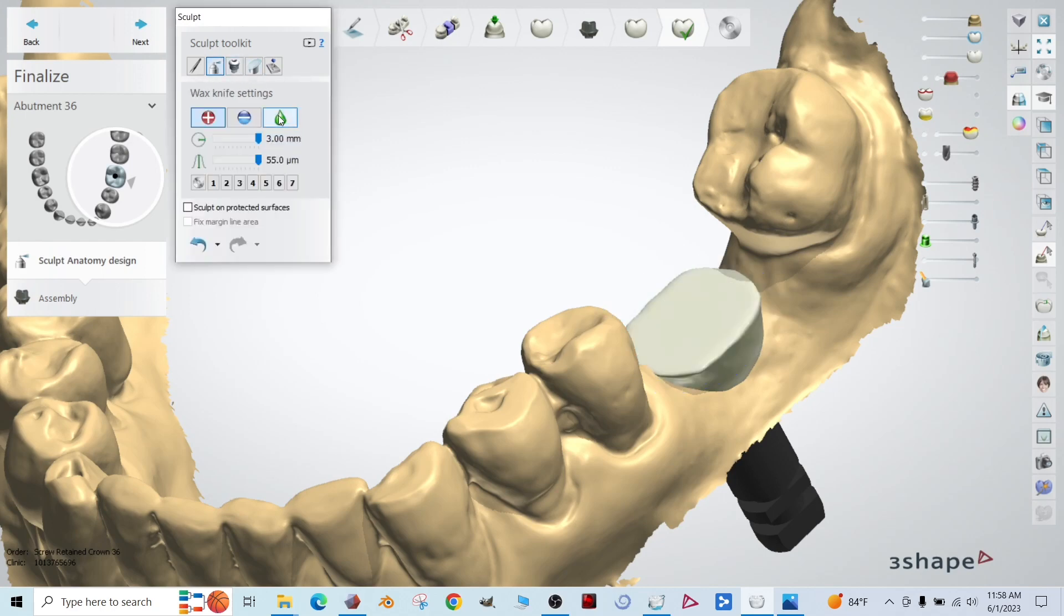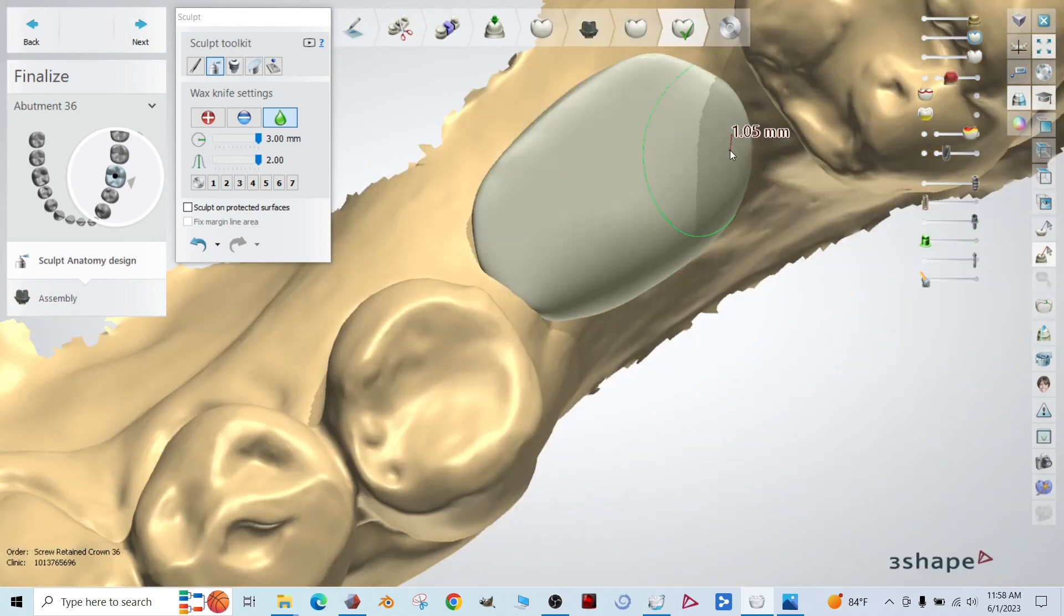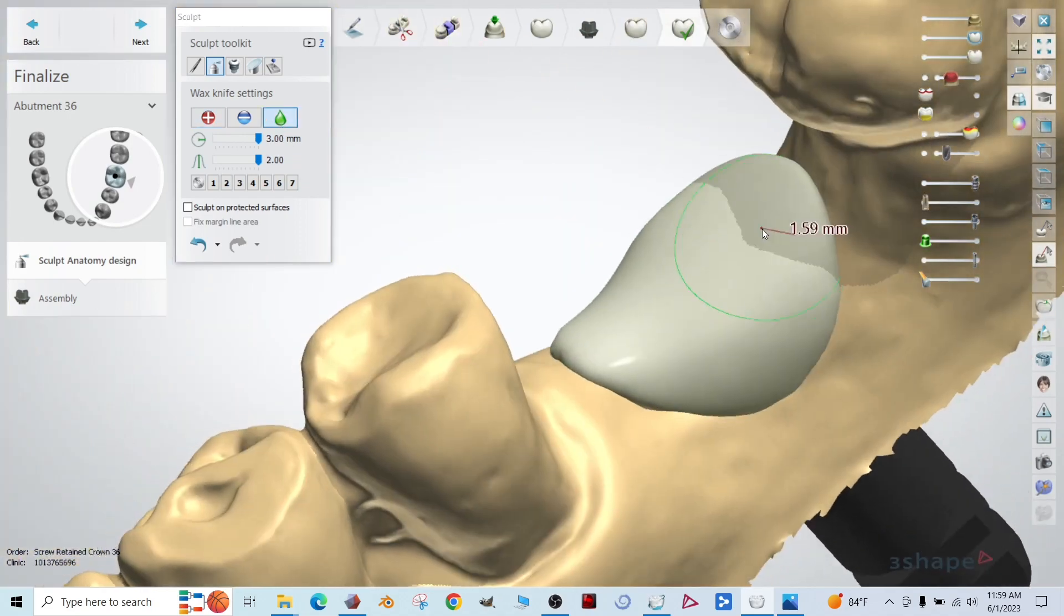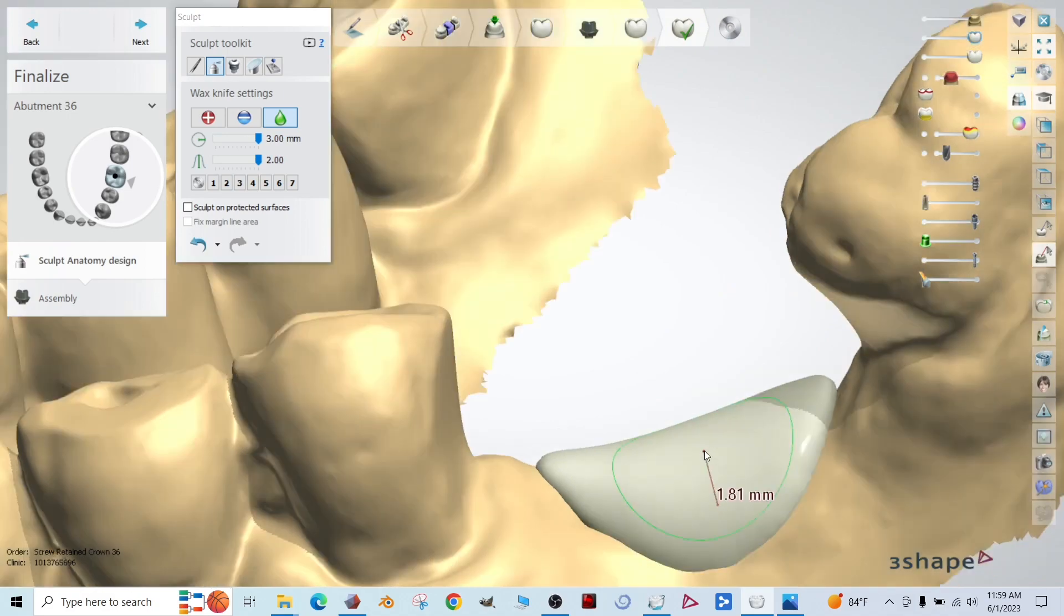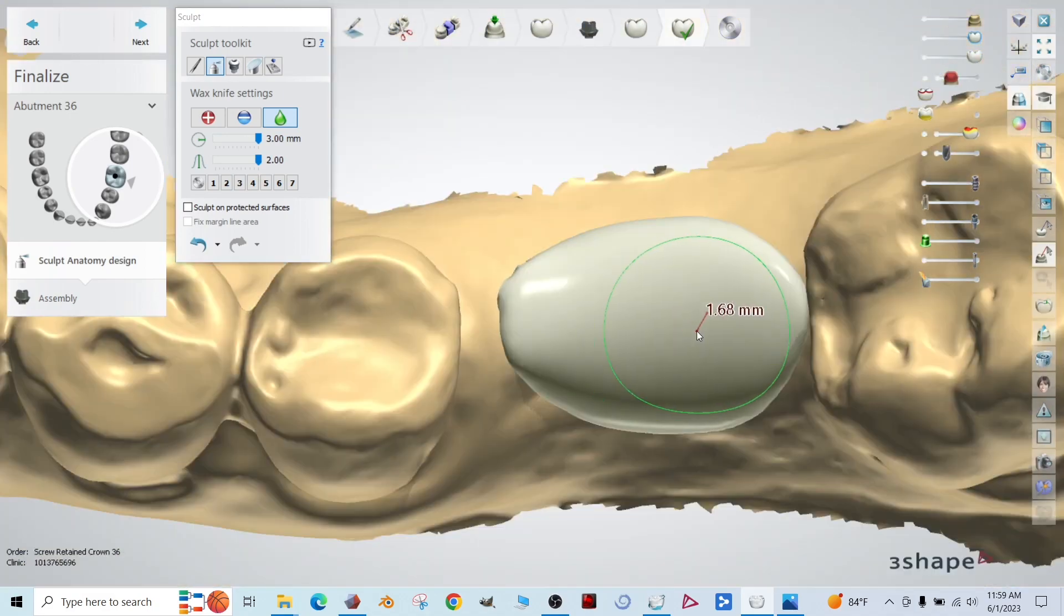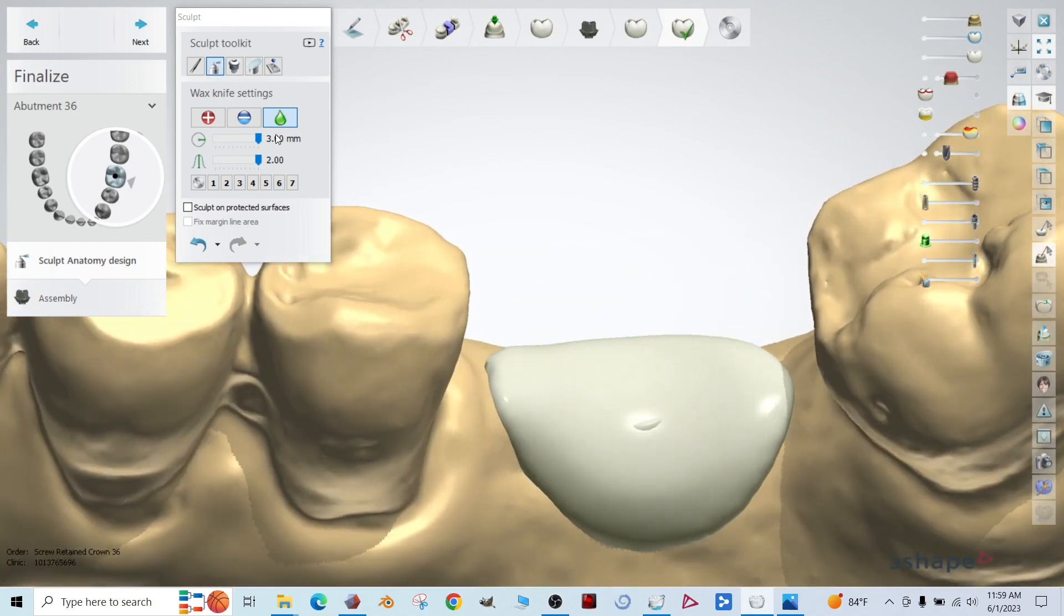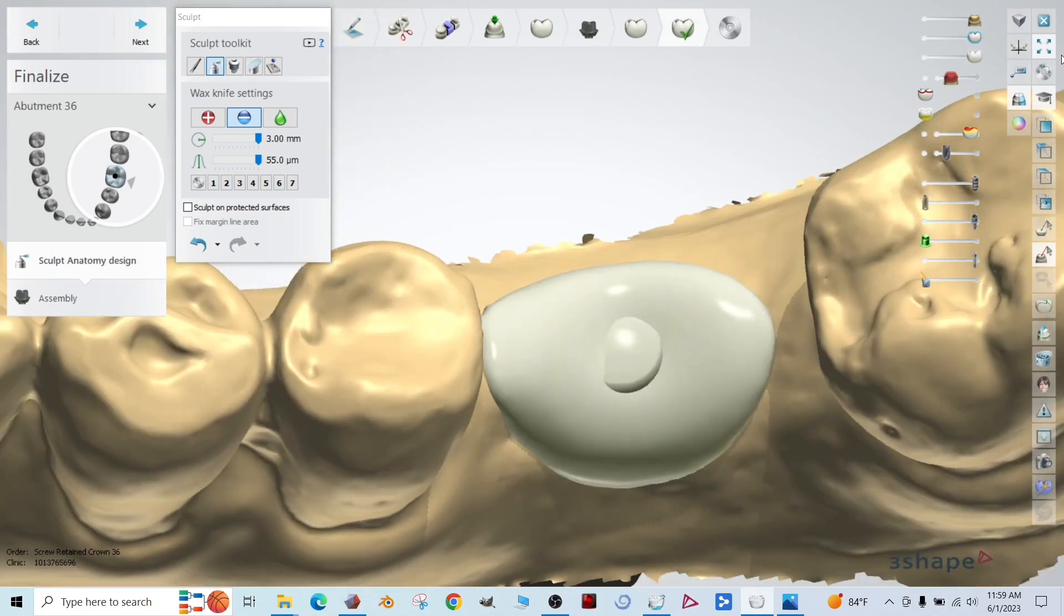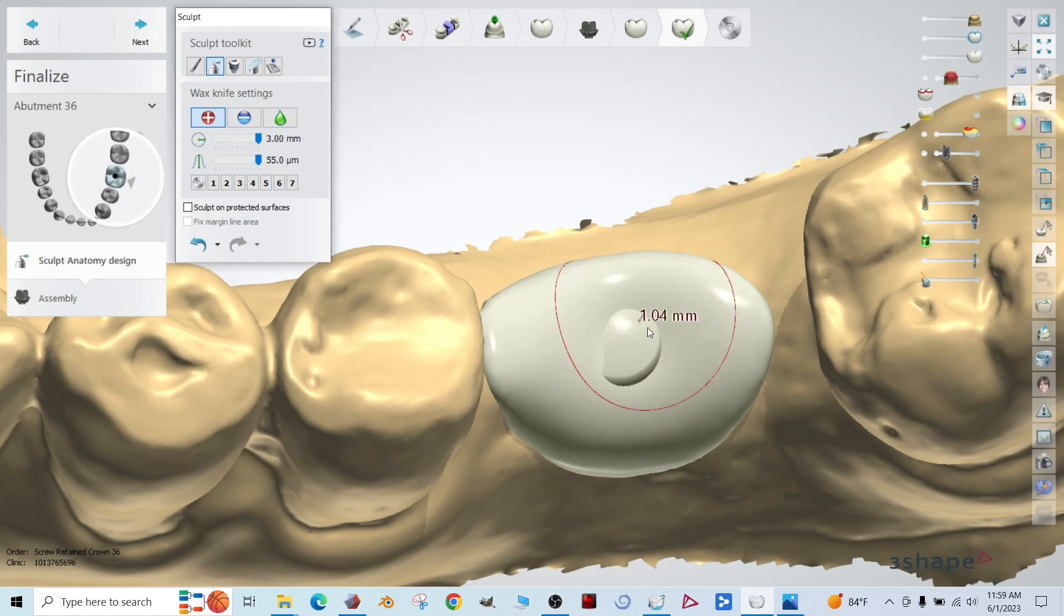All right. Now we're going to switch to the spray can, switch to our smooth tool and we're going to really smooth these contours out. Let's bulk this up a little bit. And this is all just preference on how you want the shape to look. I'm not going to spend too much time going through it. One thing I do want to show you though, is if you make it too flat, let me use the remove tool. There it is. So that's the top of the implant tie base there. Right. So that's okay. If you need it to be there, you actually have to cover it though, before you manufacture, that's something that you can grind away with the lab burr after the fact.